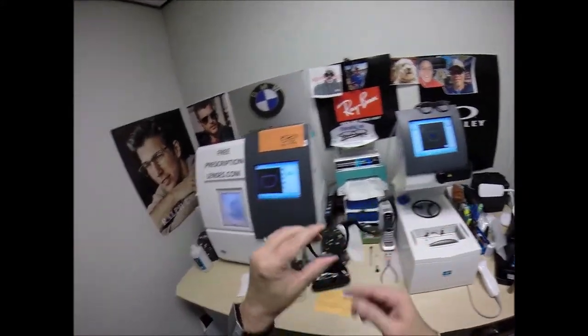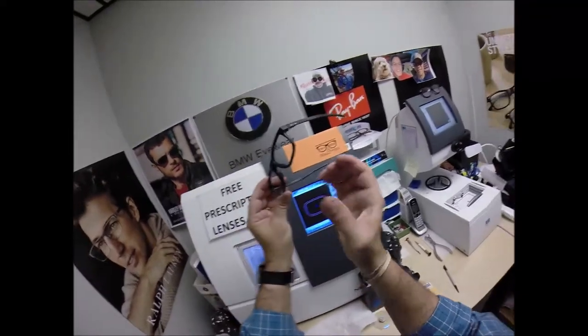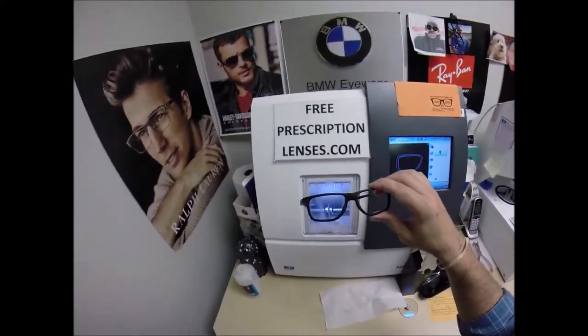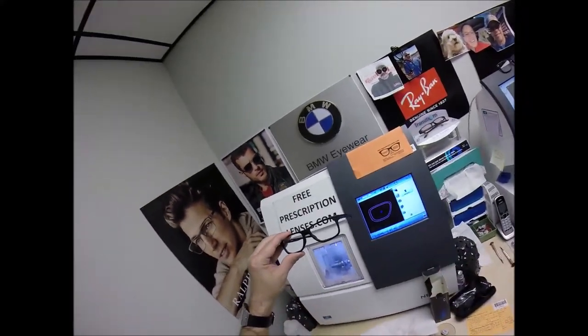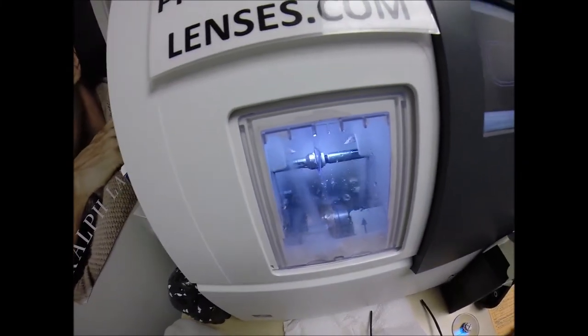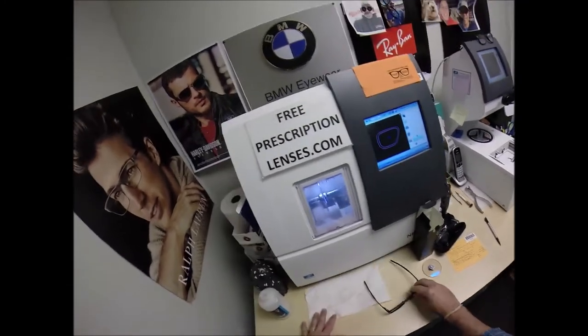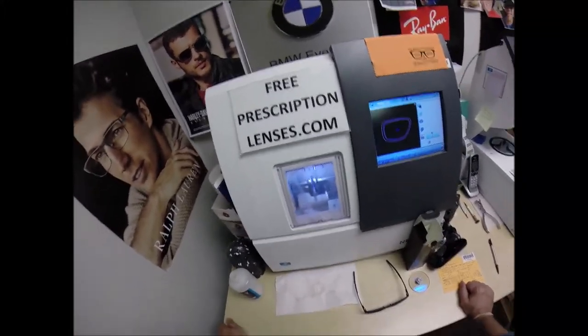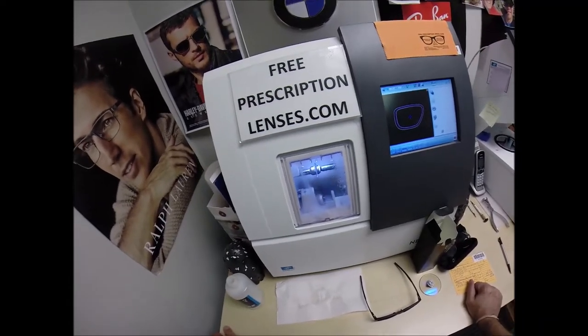I could force the lens in there. I could use heat and then force it in there. Would it cause the frame to stretch? Or would we in the industry roll? If you imagine your frame being like a gutter, the bottom of the lens would roll outwards, giving you an ugly cosmetic look as well as shortening the life of the frame. You want a perfectionist like me who cuts every pair of lenses that gets shipped worldwide to every country on this beautiful blue planet. Green and blue. It only takes a little bit. The old carpenter's saying is you can always cut more off. You can never add it back on. So it only takes a little bit at the beginning. That's the difference between ordinary and extraordinary, is that little extra at the beginning to do it right. So it takes me a minute longer. So be it.